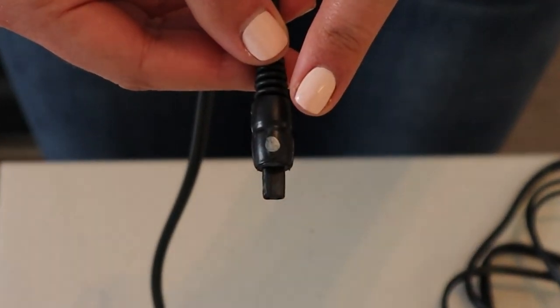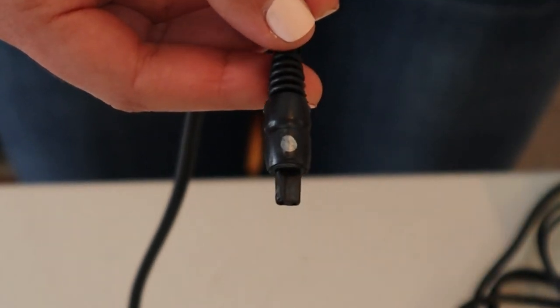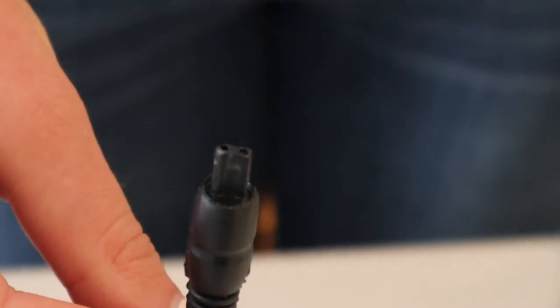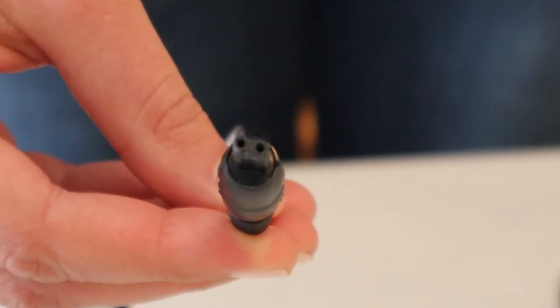To plug in the lead wire, please take note of the silver indicator. Also, notice the irregular rounded shape of the lead wire as it will only plug in one direction to the unit.